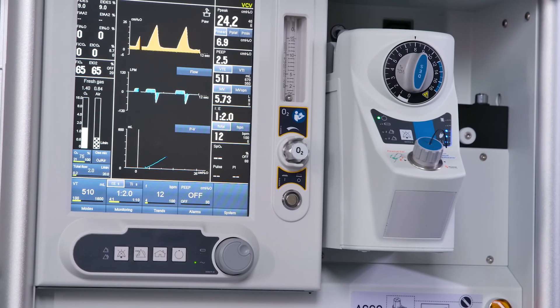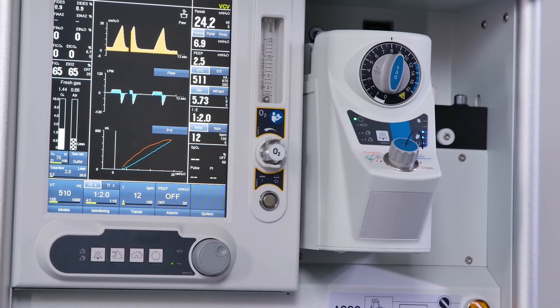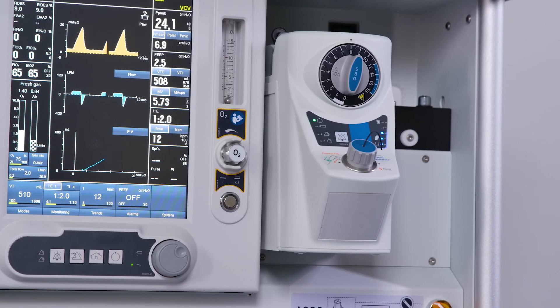Do not use the vaporizer if there is any malfunction. The vaporizer must be checked by a trained engineer.